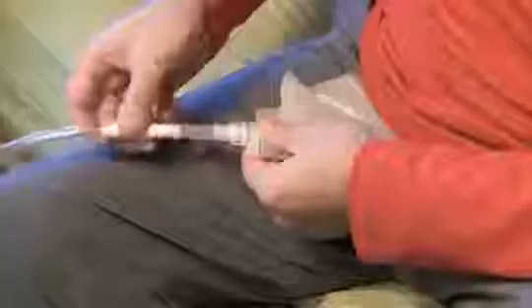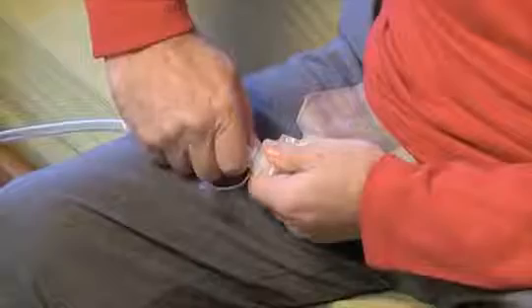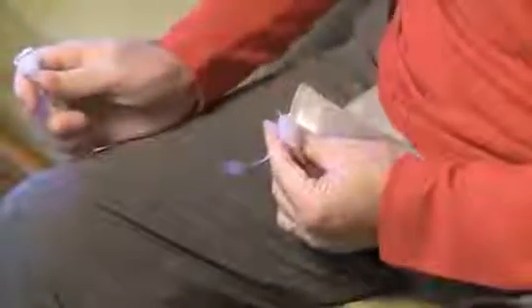In the morning when it's time to disconnect the nighttime drainage bag, first close the drain valve by rotating it a half turn. Remember the gold teardrop indicator will face toward your body when the valve is closed. Hold the drain valve with one hand, then simply squeeze the sides of the adapter and pull it away from the drain valve. Finally, if you are using a valve cap, replace it now.